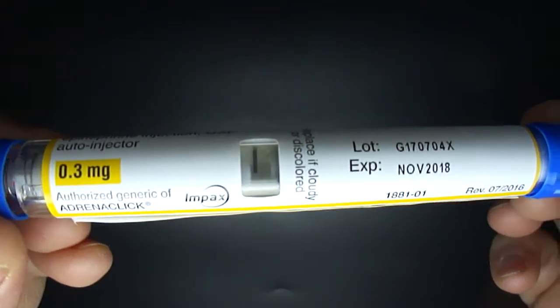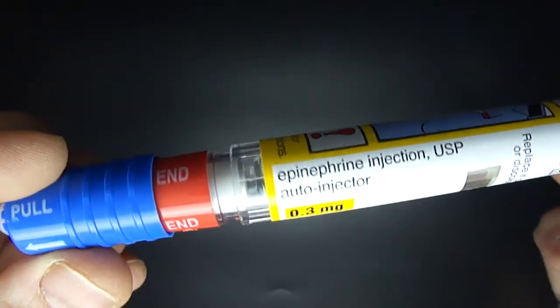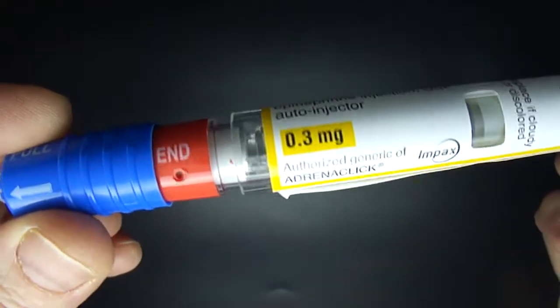You can see it has a fairly small viewing window there and you can actually see a little bit more of a viewing window if you pull the cap down gently without pulling it off.